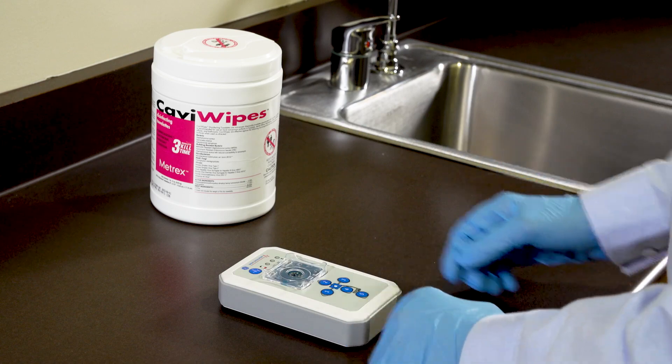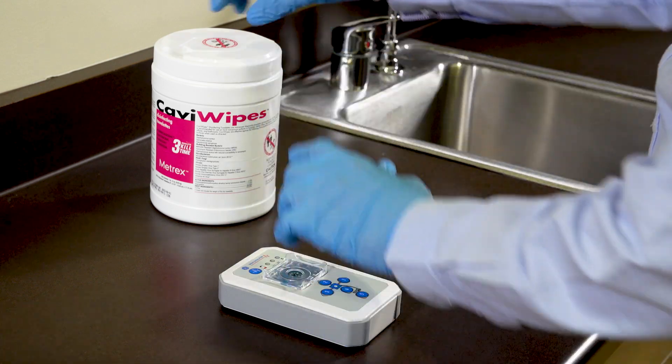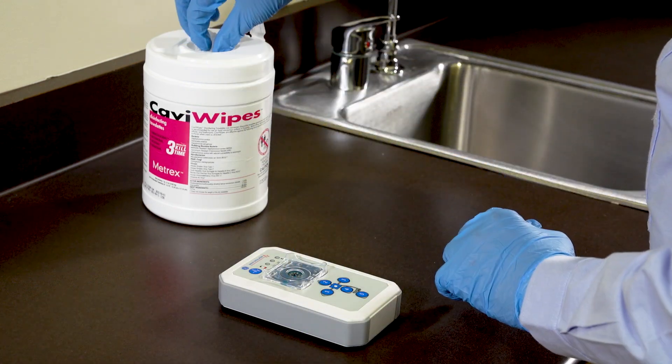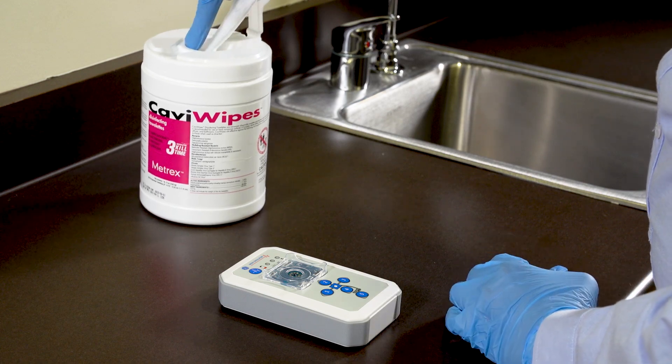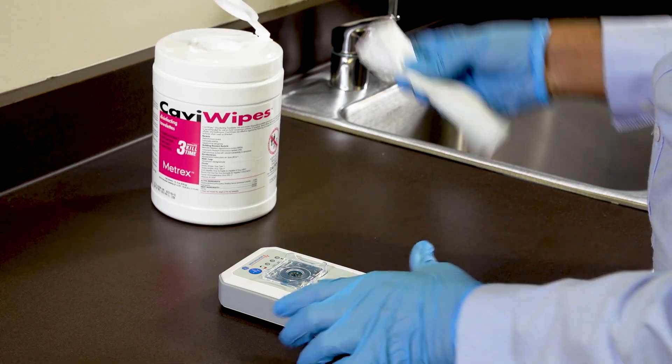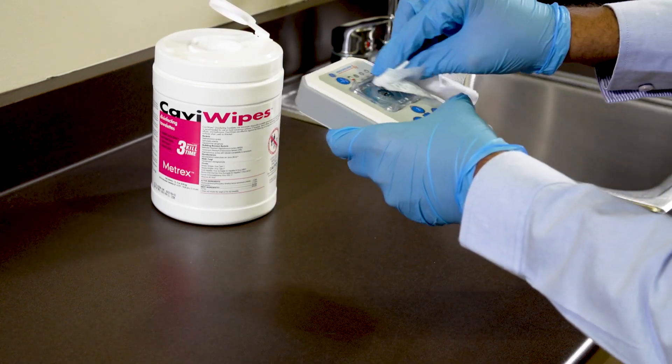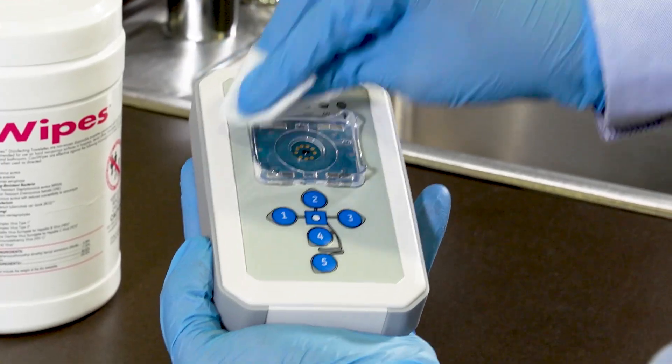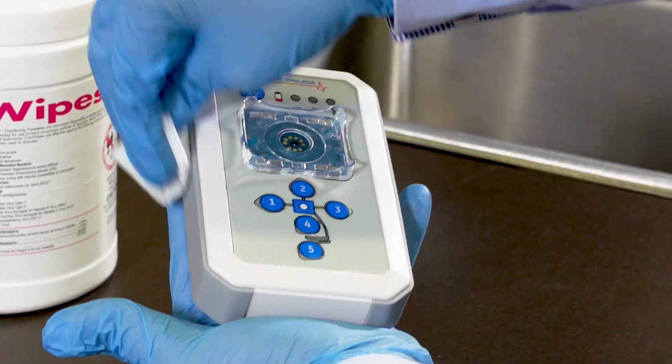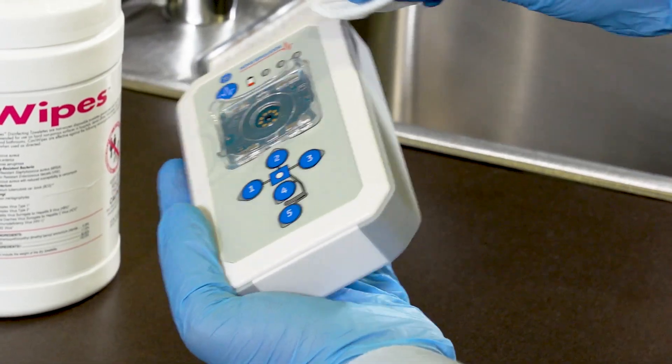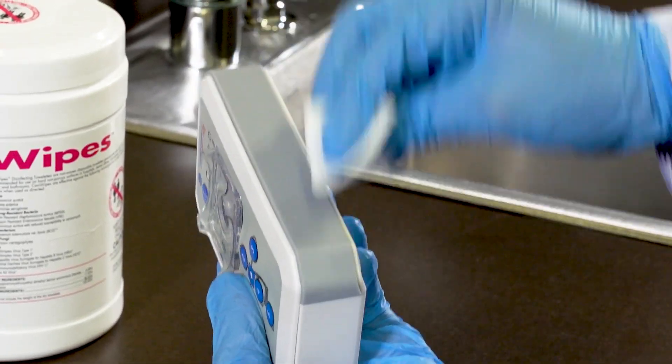Make sure the power switch is off. Spray the cleaning Cavicide solution onto a clean, disposable, lint-free cloth, or use a cleaning wipe. Wipe all the parts of the frame with a wipe. Make sure as you wipe, the Cavicide touches all sides and parts of the frame. Wipe all surfaces until they are visibly clean.